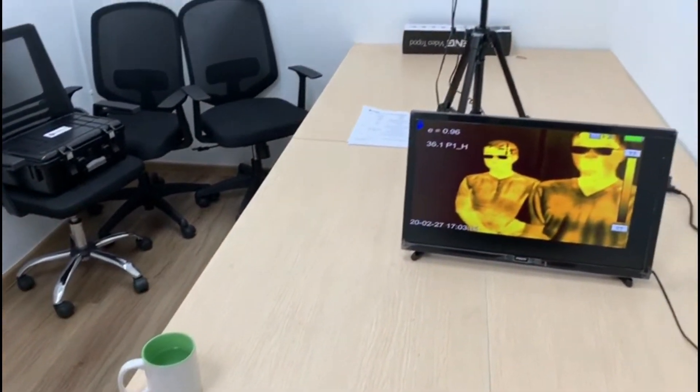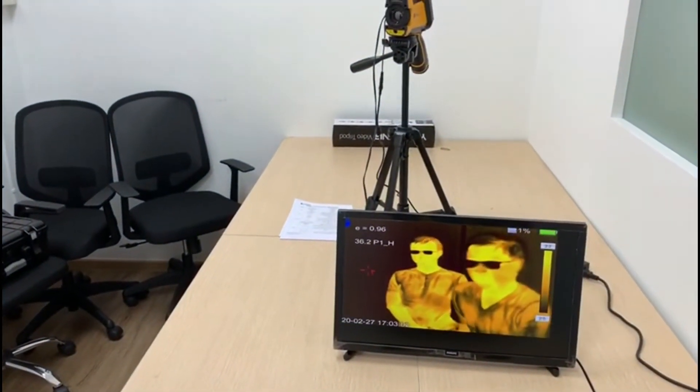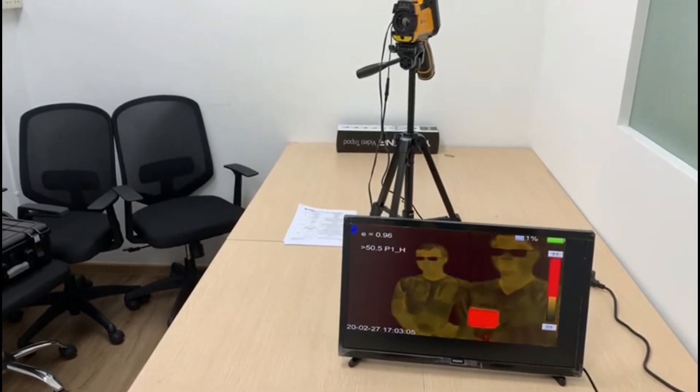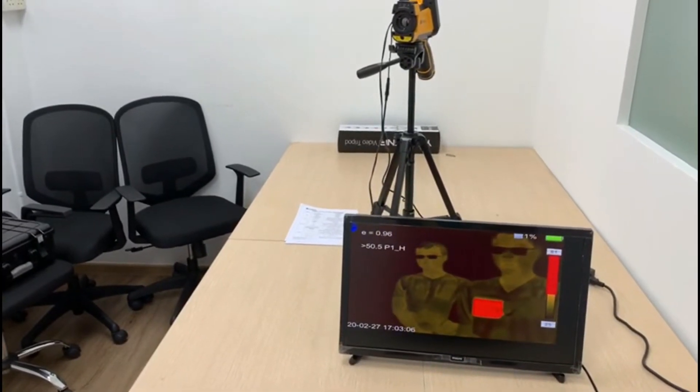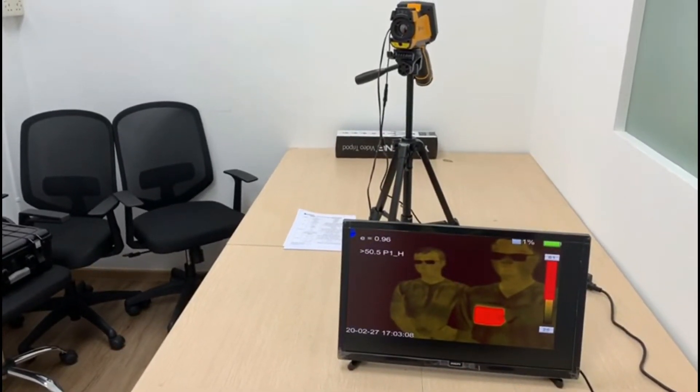This is a cup of hot water to depict a person with fever. Once it comes into the camera view, the alarm will trigger, as you can hear.